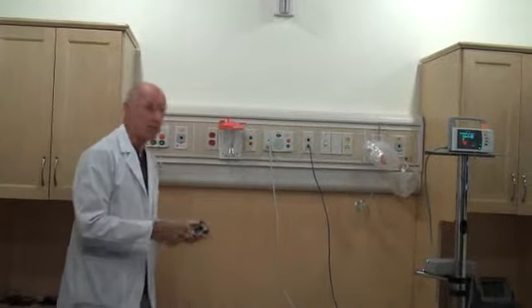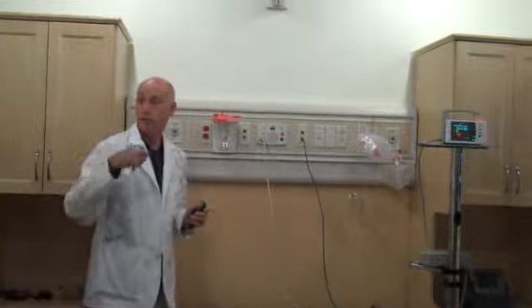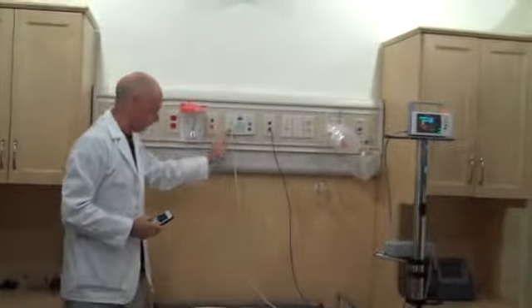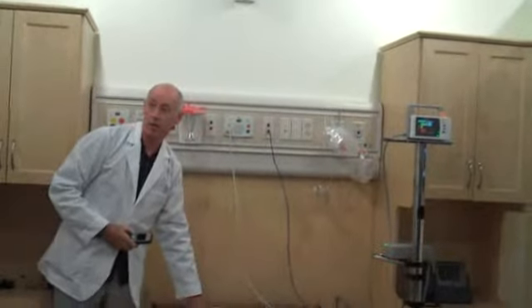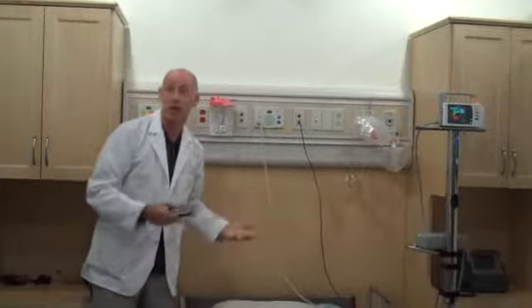Both of these stations are used by hospital staff within the room to call for assistance, to ask someone to come into this room and help them. And off the patient station down here, there's a pillow speaker. This one's used by the patient themselves to ask for a nurse to come and help them.